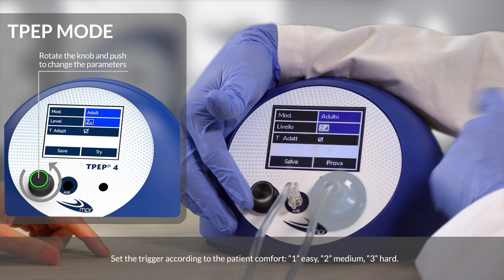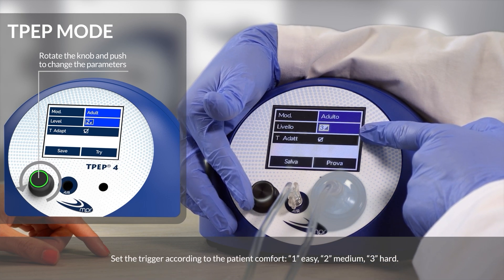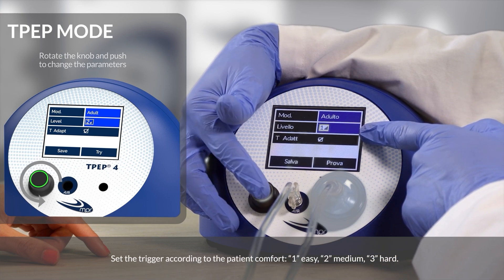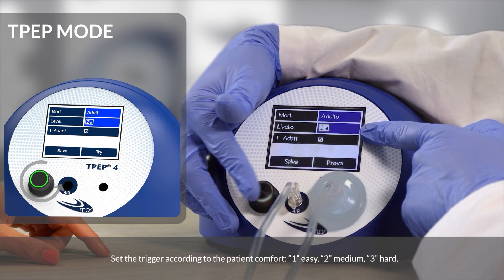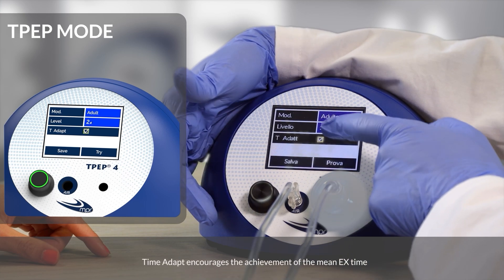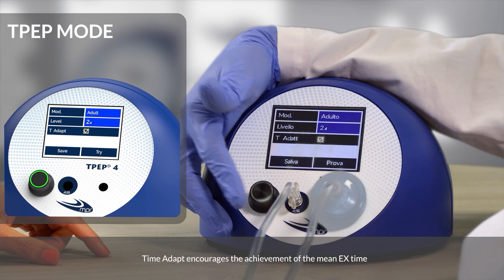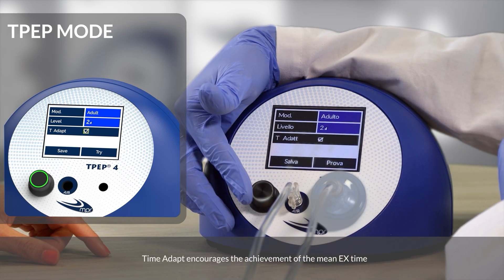Set the trigger according to the patient's comfort: 1. Easy, 2. Medium, 3. Hard. Time Adapt encourages the achievement of the mean expiratory time.